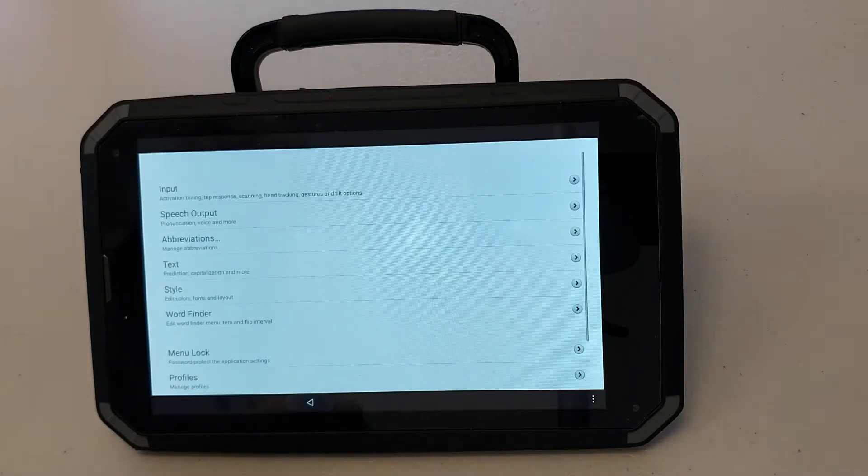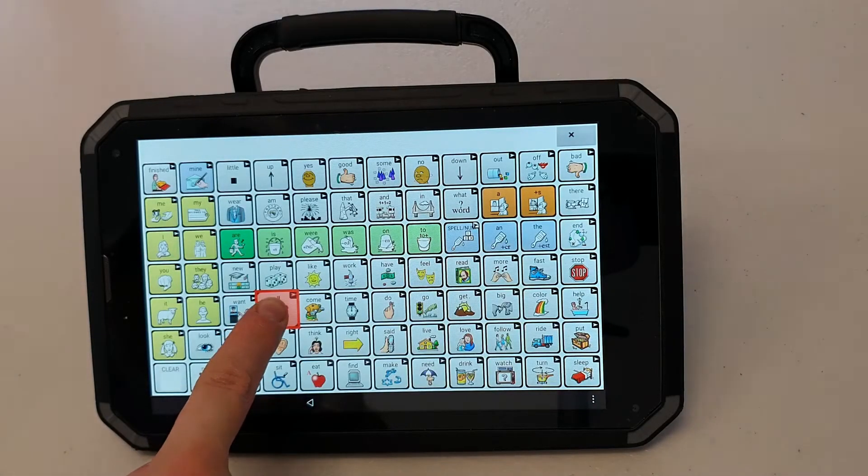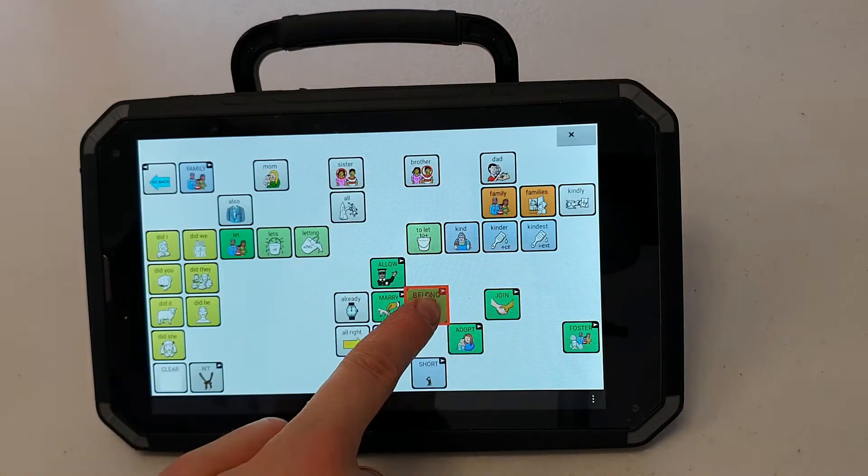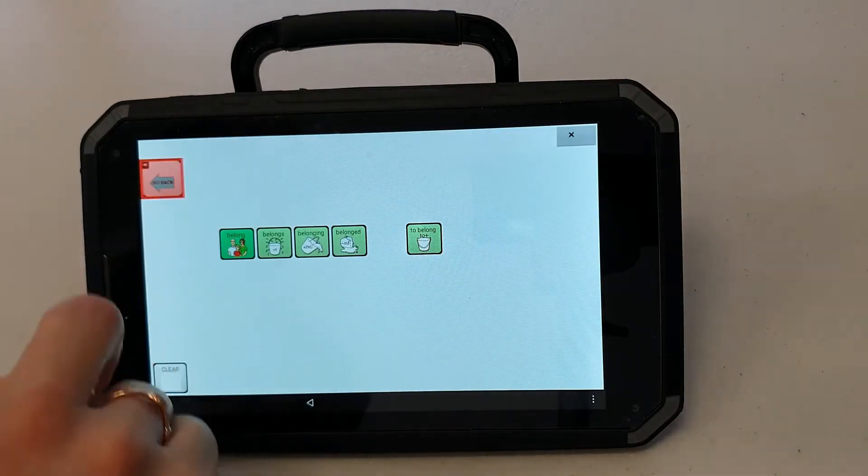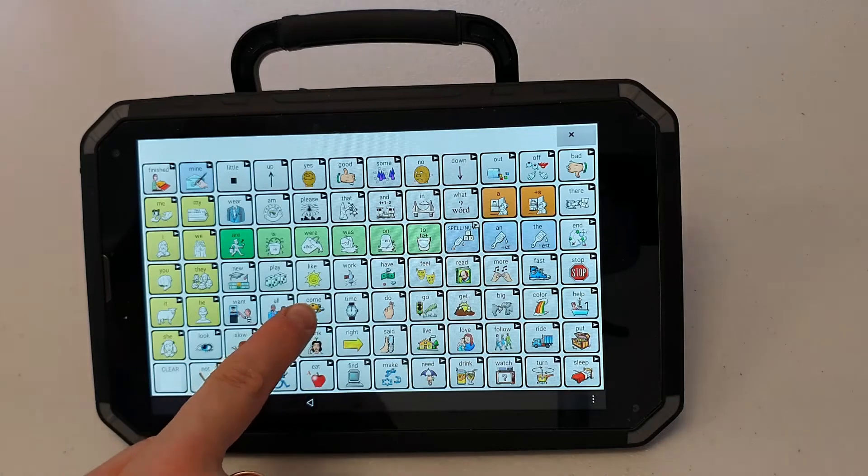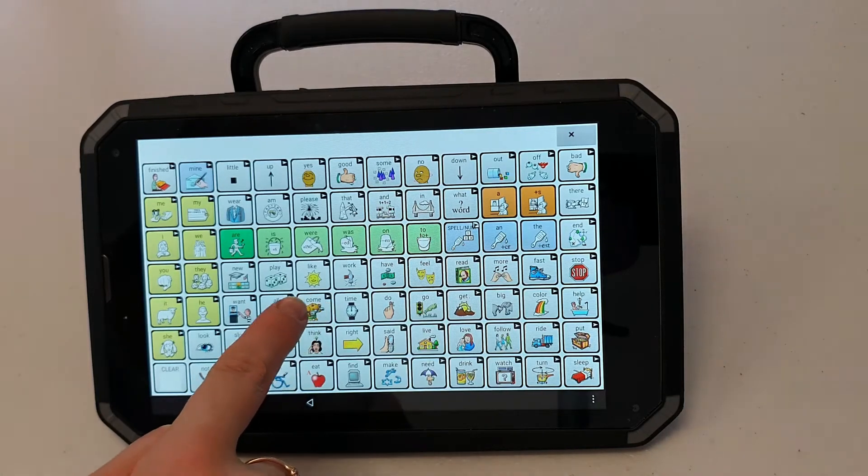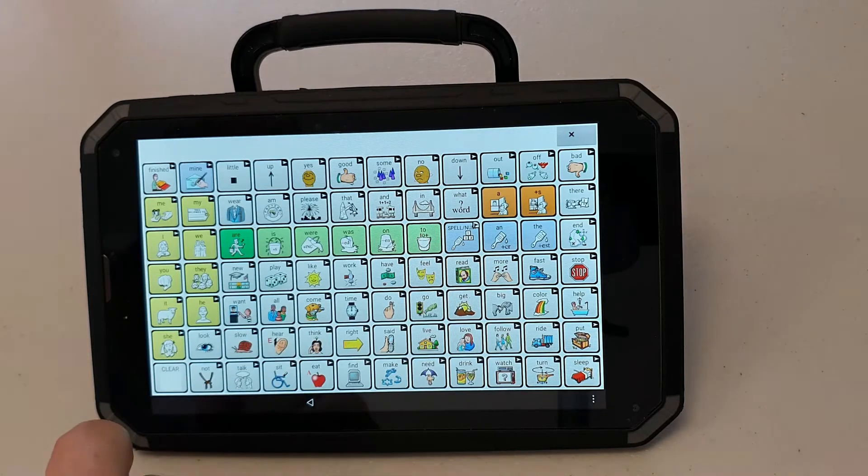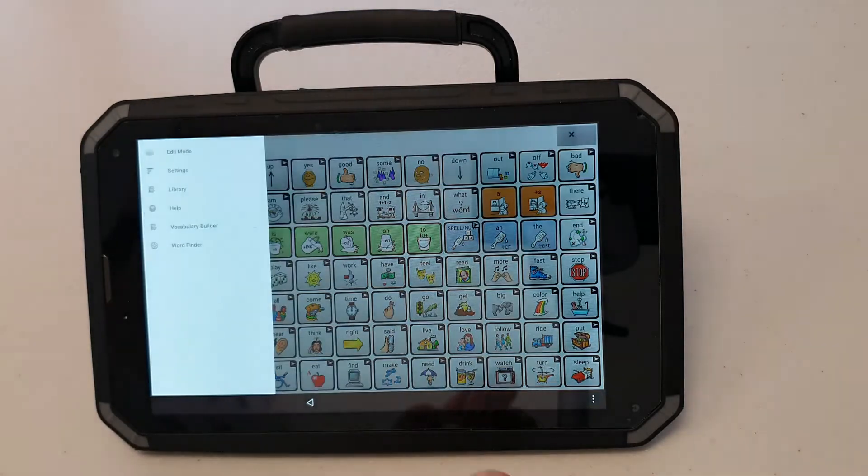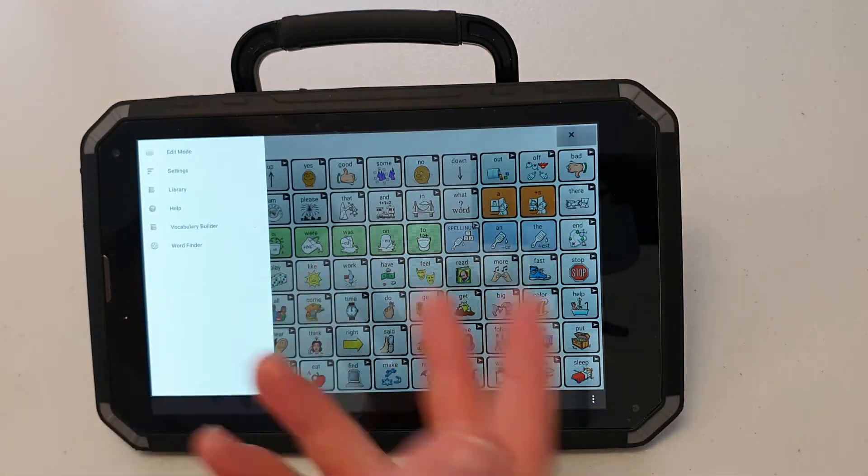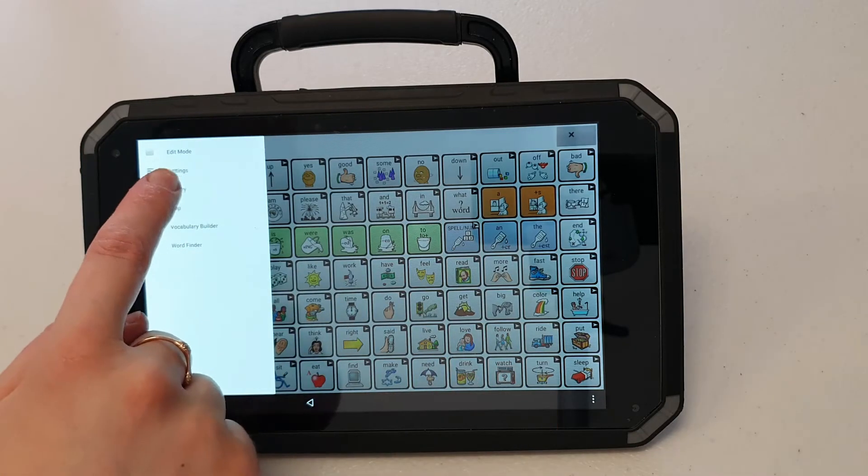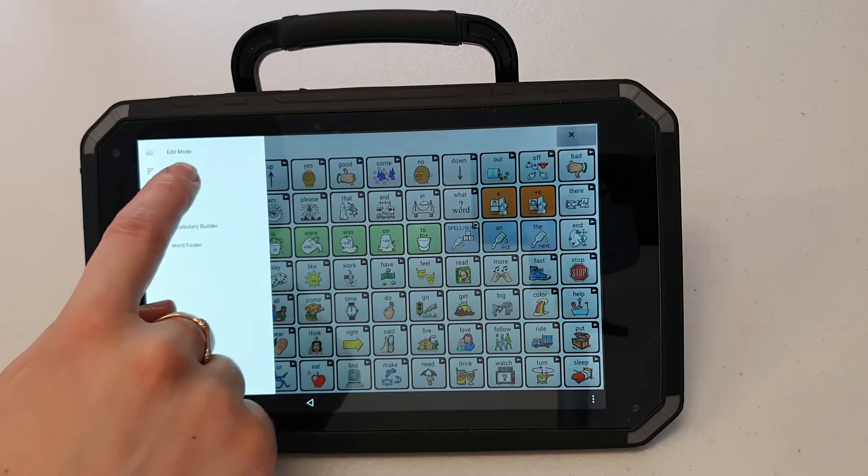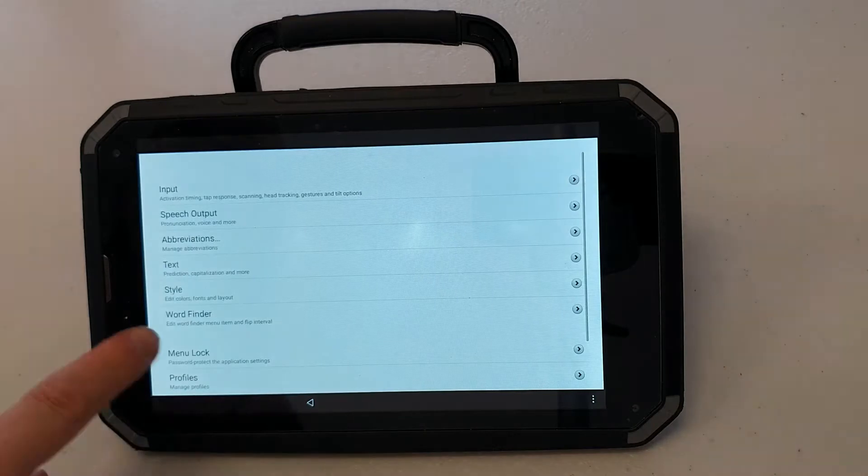I'll just show you what that looks like now. So when I press a button it will go large red. You'll also notice I have some navigation icons in the top right hand corner. I don't feel like I need these as I know that each button I press on my home page will take me to a subsequent layout in the lamp. So in order to turn this off I'll go back to my settings menu.